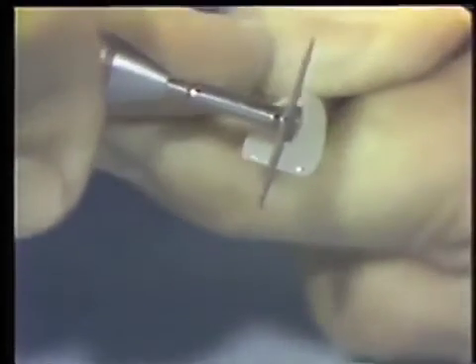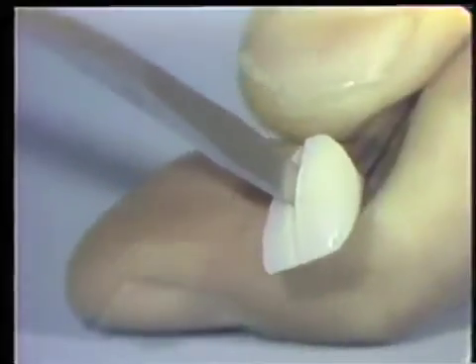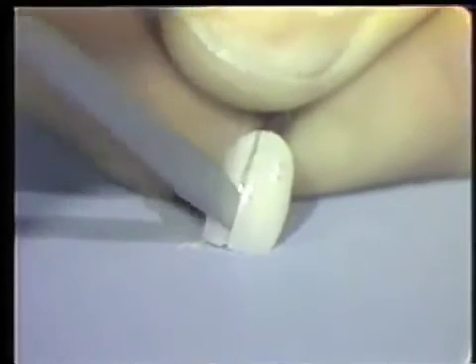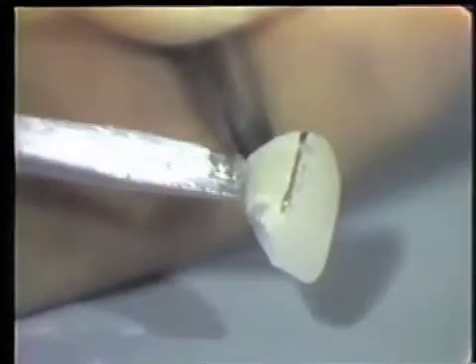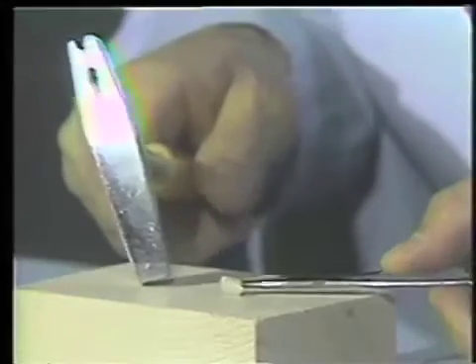You should be able to see the metal. Put the screwdriver right into the groove itself, and I'm going to twist. And you can see how much force I'm putting on this. Even though I have popped this porcelain off and torqued and twisted it, the porcelain has remained on the metal itself. This is a test that some manufacturers use to determine bonding strength.